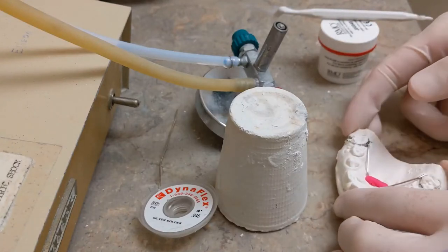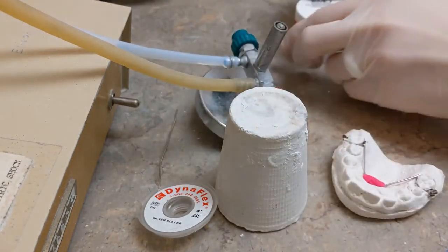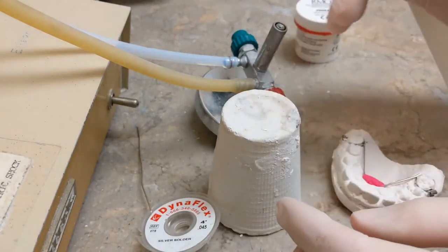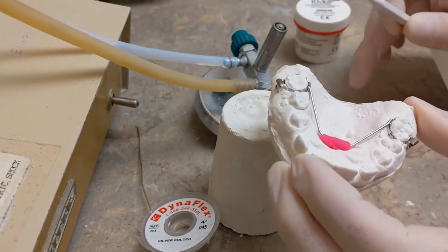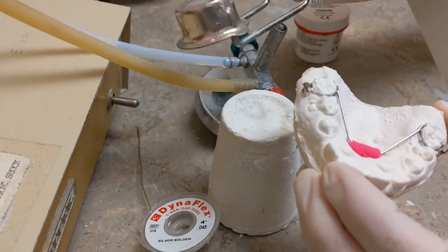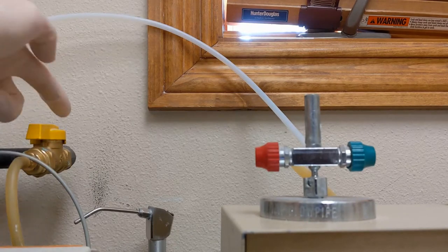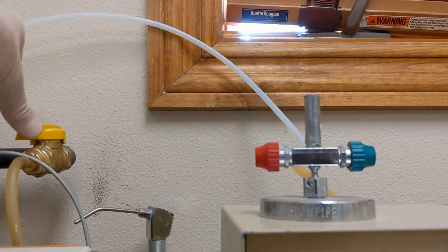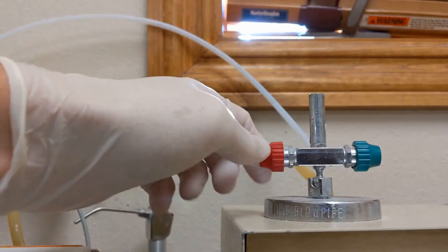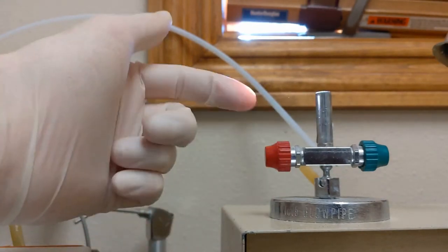To solder the wire onto the bands you need: flux with a little brush to apply it, solder, a professional lab torch, and a little pedestal of stone to set this on. Do not solder with the cast sitting on the countertop — the heat will burn it. You also need something to light the torch, in this case a sparker. To light the professional lab torch, first turn on the gas from the source. In-line with the pipe means the gas is on; 90 degrees to the pipe shuts it off like a gate. Make sure it's parallel with the pipe.